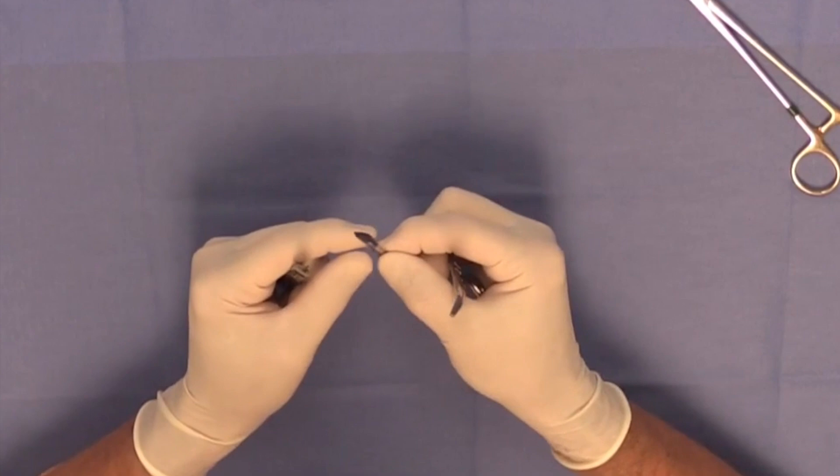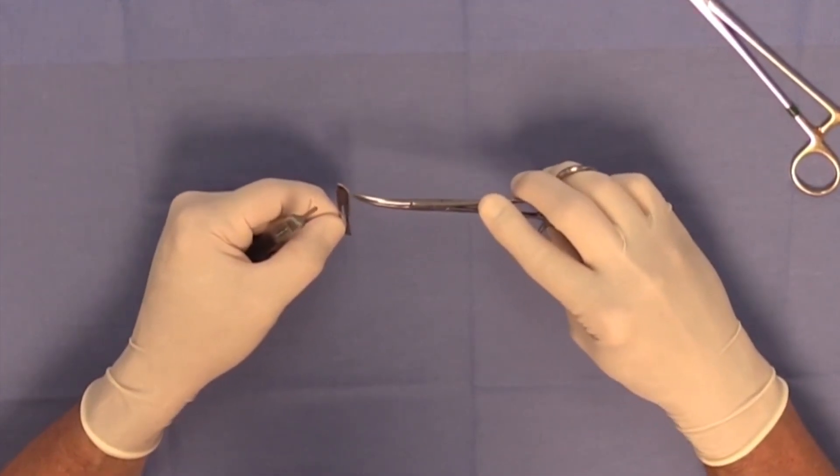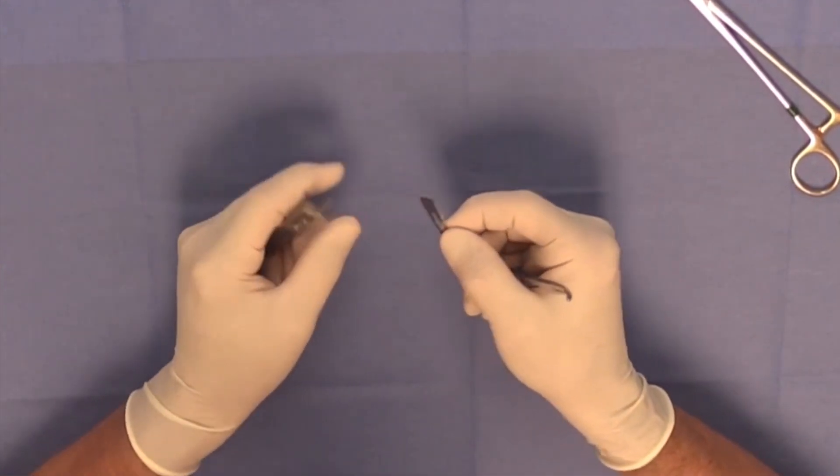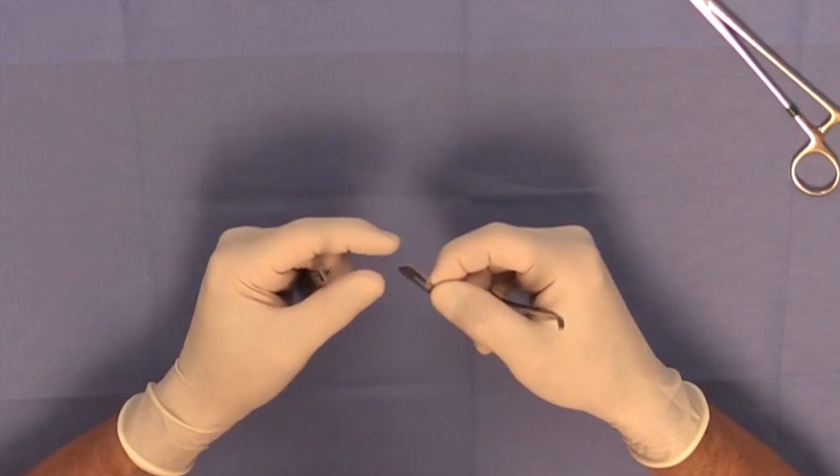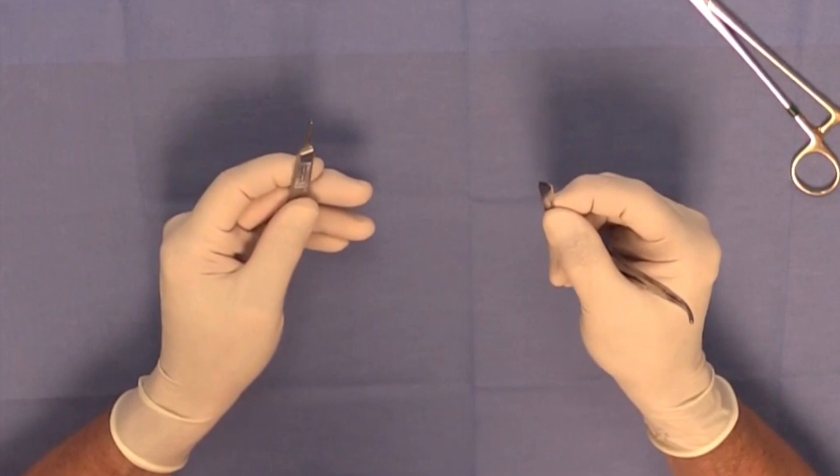Obviously, the scalpel blade has got a fair length of sharp edge and blade to it, i.e., it is called a scalpel blade, and so you need to avoid that. It would be very dangerous to apply this scalpel blade to the scalpel handle using your fingers.